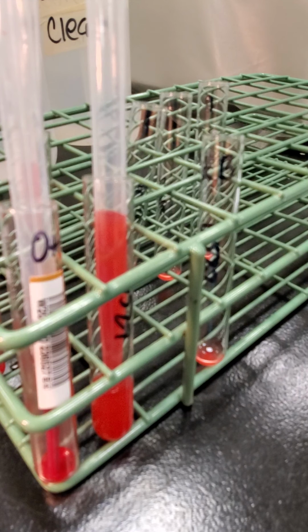So yeah, this was an easy lab. So that's the end of our processing blood from outside suppliers. So go ahead and watch, I'm going to upload a PowerPoint voiceover like I did for the last dry lab, so review that information. I'm going to cover some more specifics about this and some other stuff too. And there will also be questions I'm going to make up for this lab too. So make sure that you're answering those questions and using that PowerPoint to answer those.